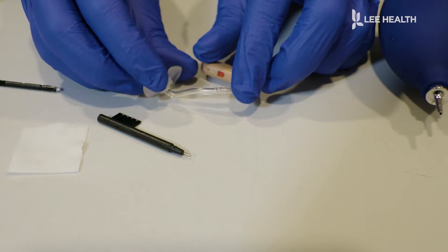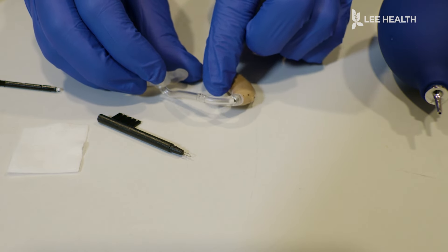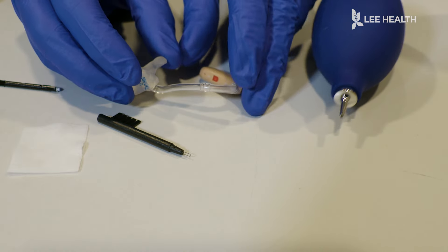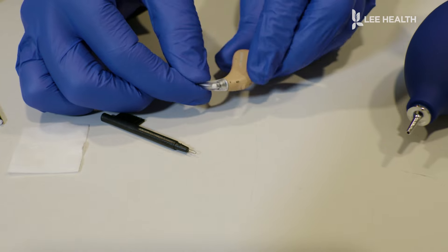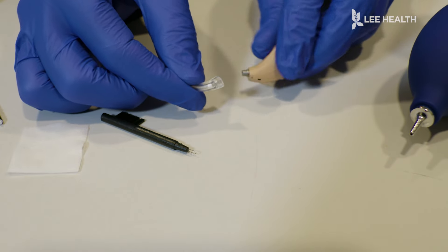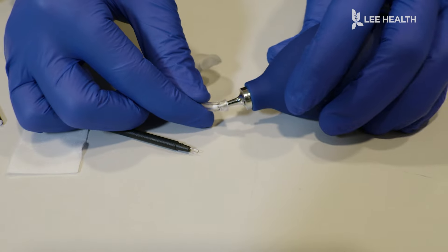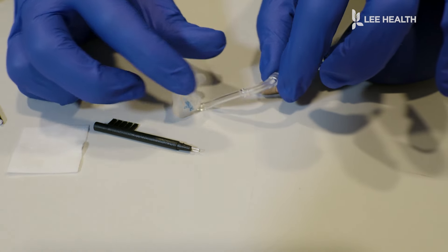If you see or notice any moisture, any bubbles coming, condensation in this tubing or in the tone hook, we have a blower that we're going to use to puff that out with some air. We're going to unscrew this. It's kind of a left unscrew. And once that's disconnected, then you can connect the blower and give it a few pumps of air to really dry out any of that condensation in here.